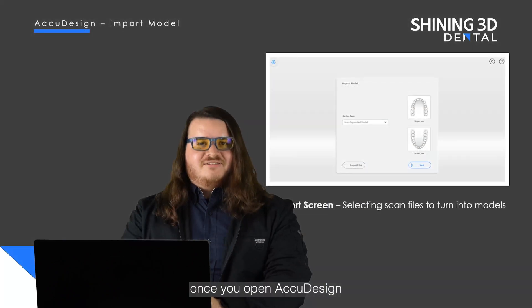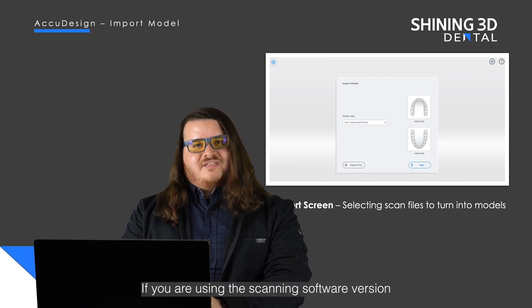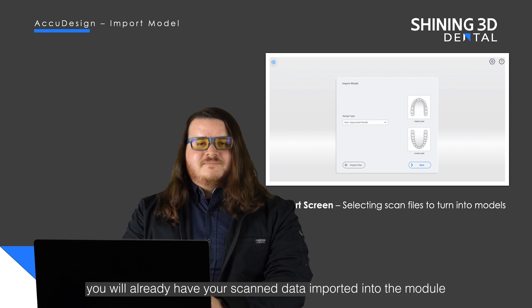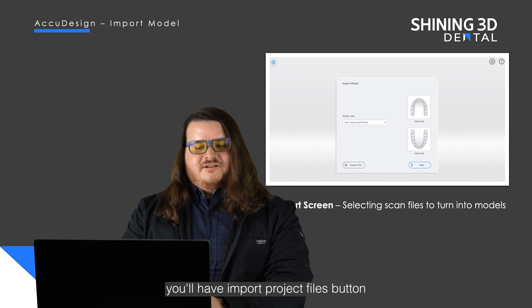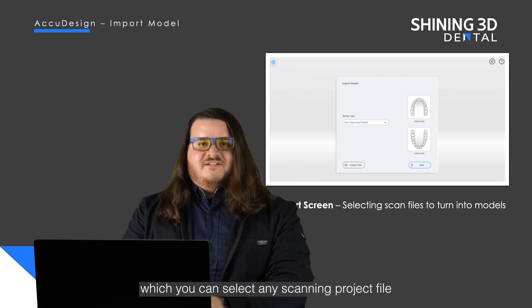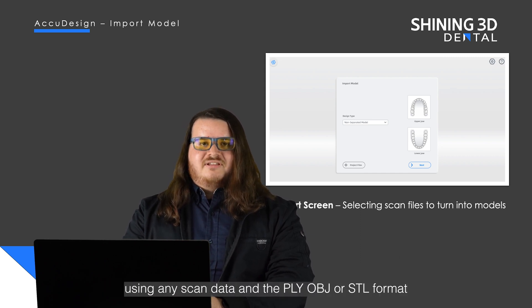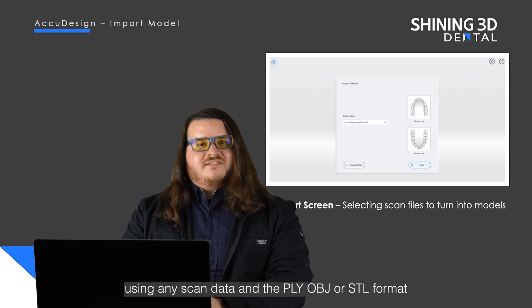Once you open AccuDesign you'll be greeted with the import model screen. If you are using the scanning software version you will already have your scan data imported into the module. If you're using AccuDesign standalone, you'll have an import project files button which you can use to select any scanning project file from one of our scanning softwares, or you can select the individual upper or lower jaw to import using any scan data in the PLY, OBJ, or STL format.